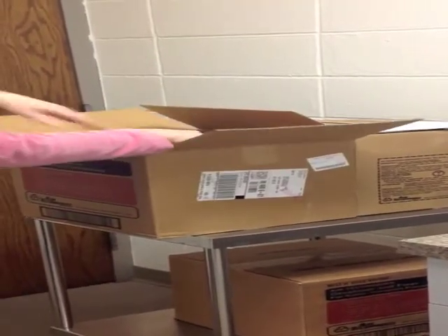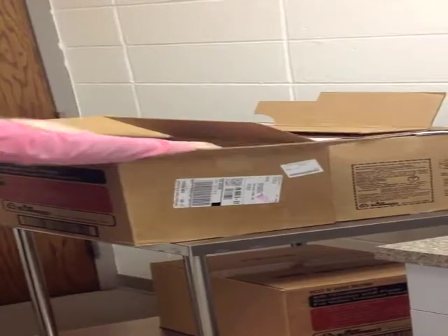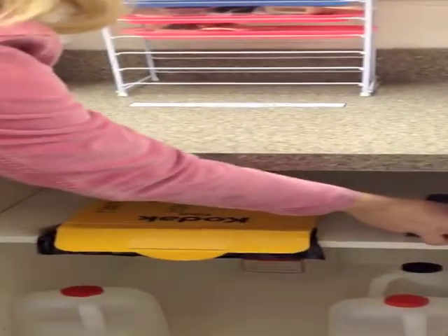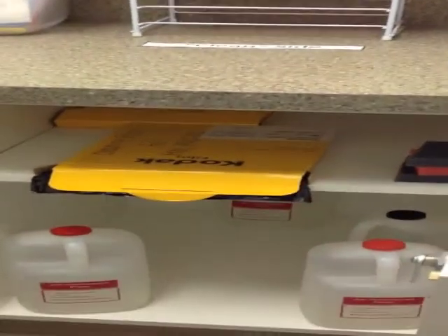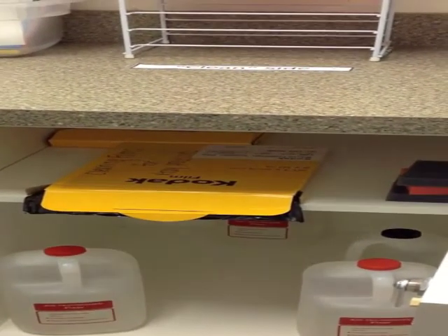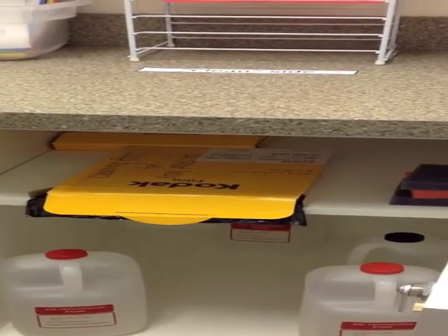When you open the boxes, you will remove the fixer and the developer, placing it in the cabinet, along with the black and red sponges that come along with it. These are for when you need to clean the auto processor. We'll fill these up until there's plenty of fixer and developer left, so that when you're CA or RA the next time, this job is made that much easier.